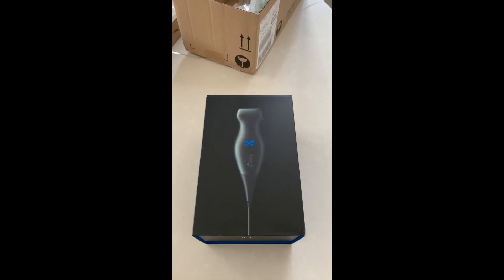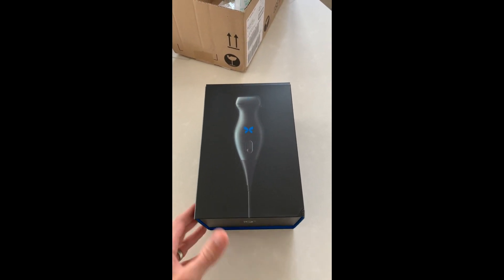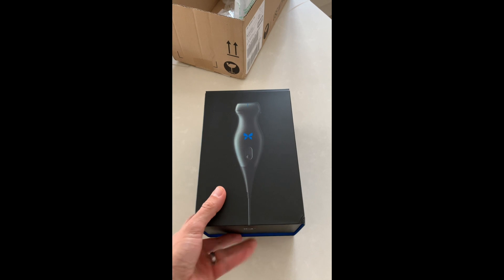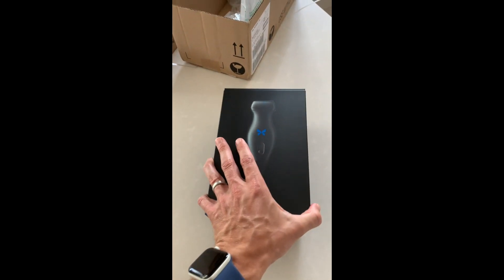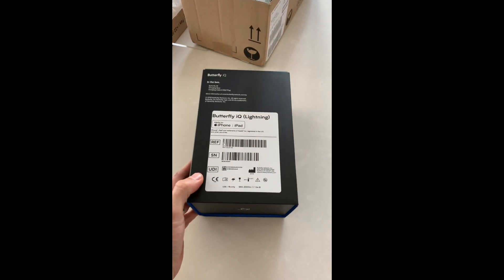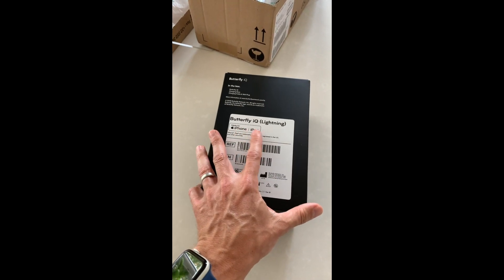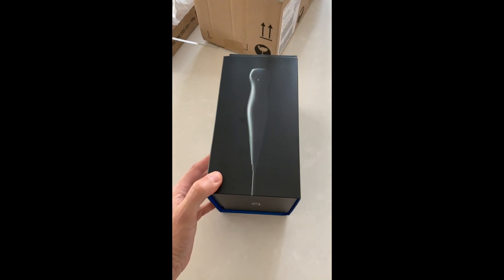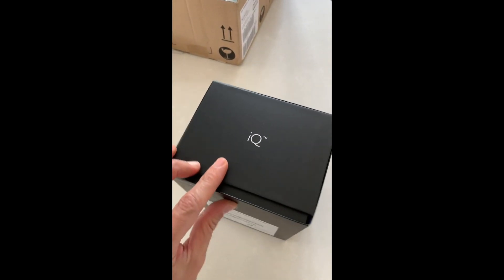Hold the phone back. I'm going to try and do this one-handed. I'll show you the unboxing process. I genuinely haven't looked at it yet, so this is all very exciting. Here it is, in a fantastic, almost very Apple-esque type container. Very aesthetically pleasing. They've done well. I've gone for the iPhone-compatible one, but they do an Android-compatible one as well. No concern of mine, however.